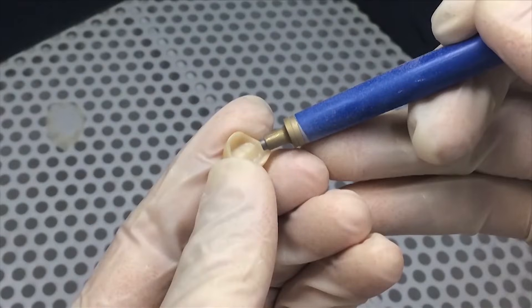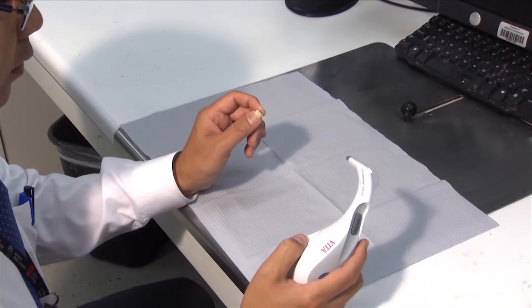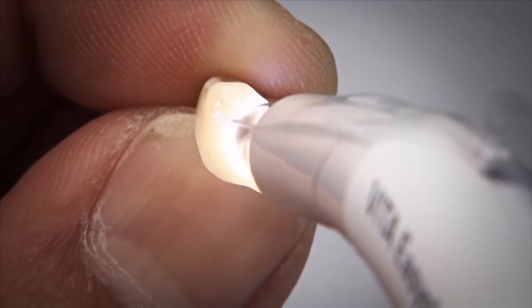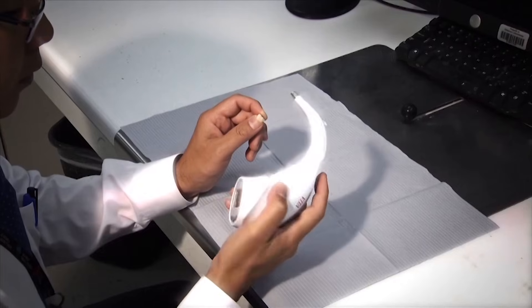And as a result, Rella has asked us, is there any way you guys can just polish the outside of those crowns? So for any doctor who asks for it, we do just polish the outside of the crown without any glaze. It's not as pretty, but it doesn't wear the opposing at all without the glaze.